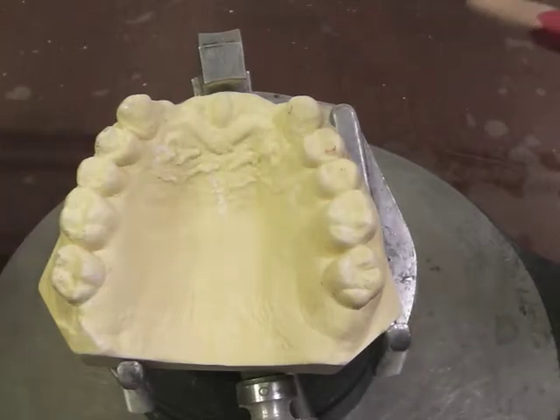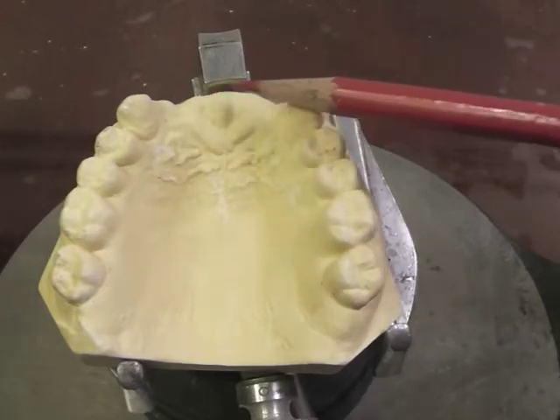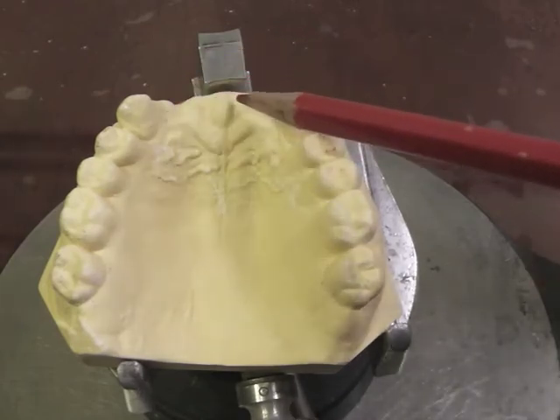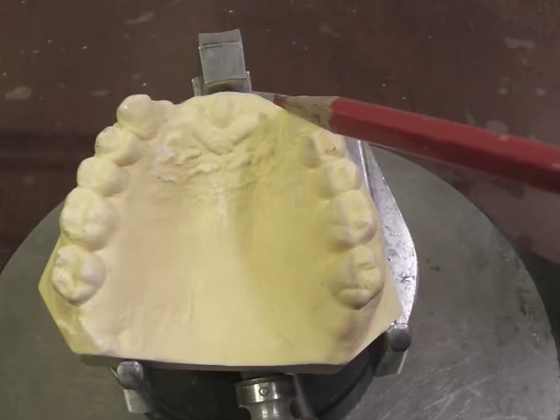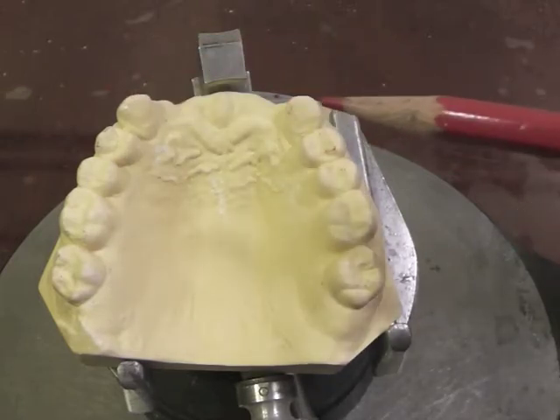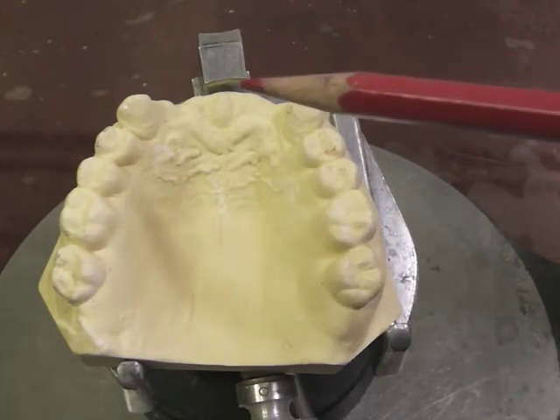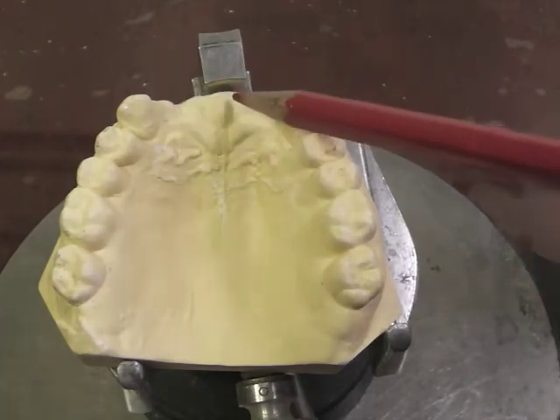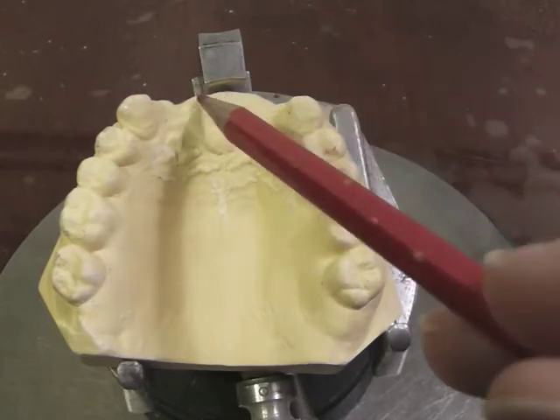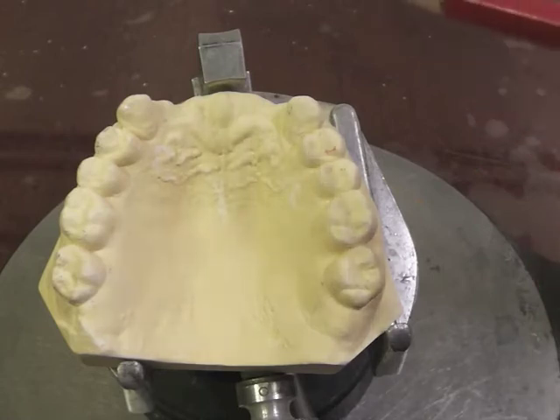We have here a cast that exhibits the rules for a Kennedy Class IV design. We have a single bilateral edentulous area anterior to the remaining natural teeth, and that is our definition of the Kennedy Class IV. Note that we're talking about a bilateral area — it has to cross the midline, or it would be another classification.